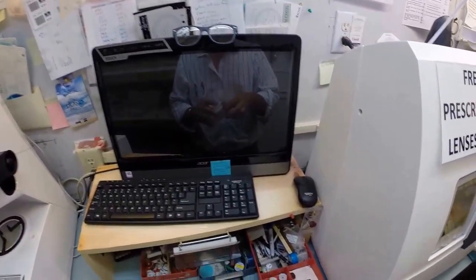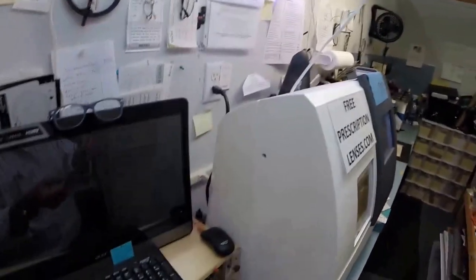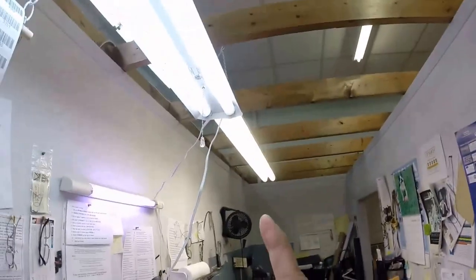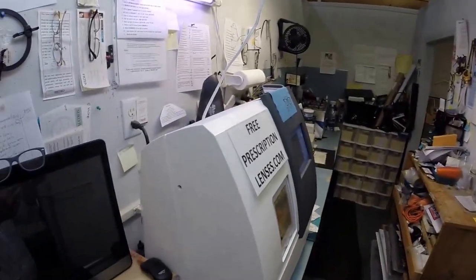You have permanent sunscreen for your eyes. Unlike lotions, creams, and sprays that need to be reapplied every few hours when you're in direct exposure to the sun, this is permanent and never needs to be reapplied. Now the Crizal anti-glare coating, it's actually three features in one. The first feature is it eliminates glare, especially glare when driving at night, particularly driving at night in the rain. But from streetlights, stoplights, computer screens, overhead fluorescent lights, that kind of thing.